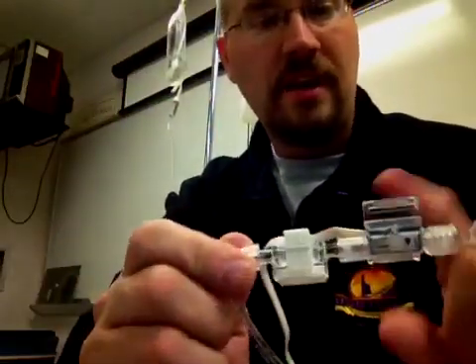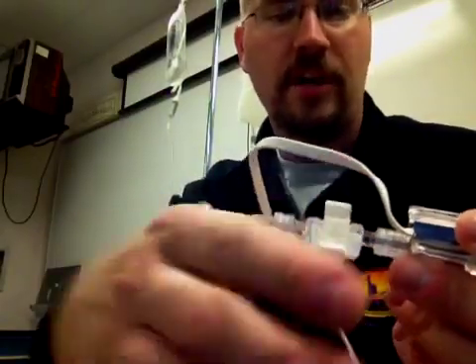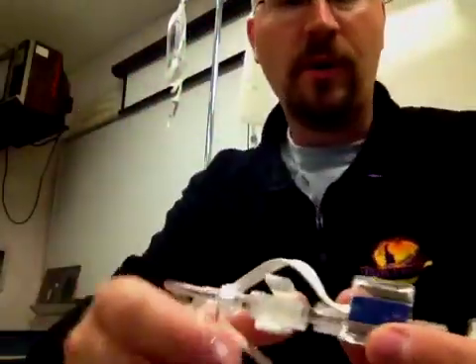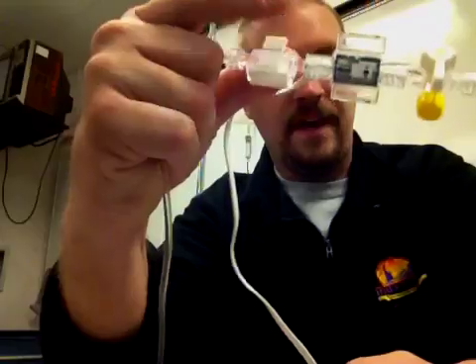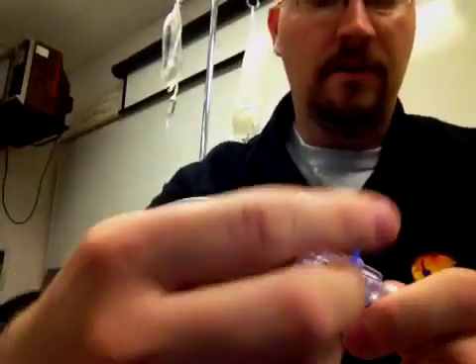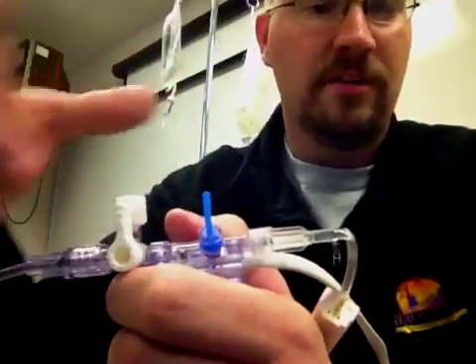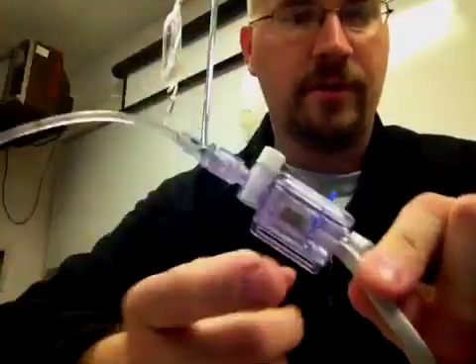Just a couple of other characteristics of some of these systems. This is one that's really common. I talked about the transducer here. This, these little wings here, is for what's called a fast flush. You actually push these wings and it opens a big valve in here, and I can flush fluid through real quickly. I can do that for a couple of different reasons. Maybe I can check the patency of the line, maybe I can do what's called a damping test, and we'll talk about that later. But in any event, I can flush through there through the agency of these little wings. Now, some devices, instead of having wings, will have a little thing like this. The slang term is a pigtail. You actually pull that and it opens a valve, but it's just the same as squeezing the wings. And of course, the transducer is right here.